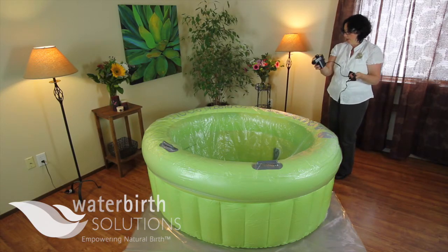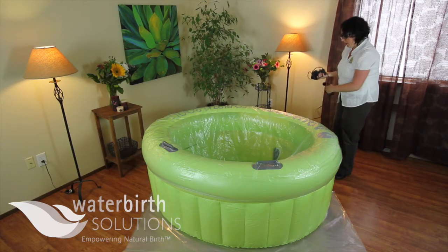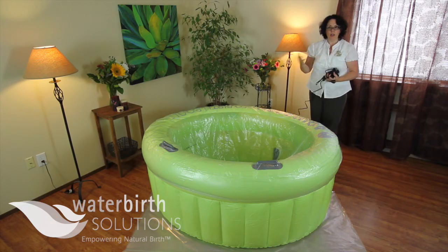You're going to want to put away your electrical air pump before you bring out your water, but that is how you inflate a pool.